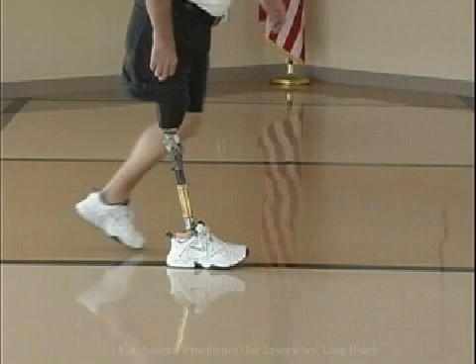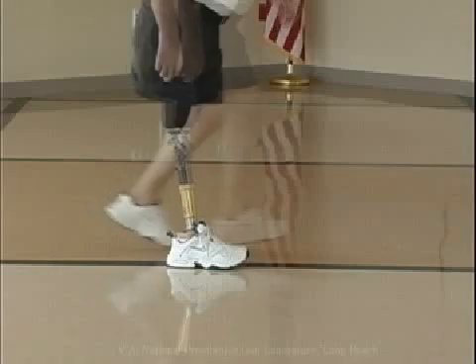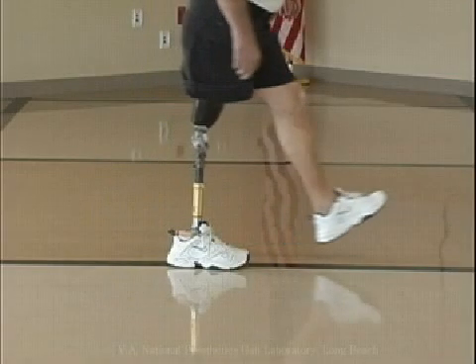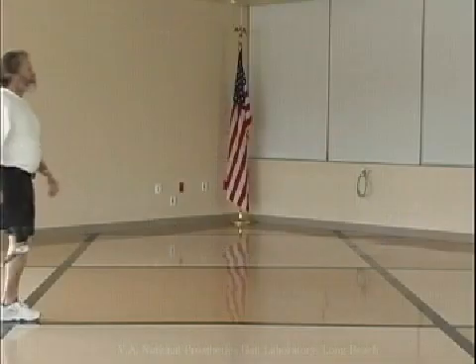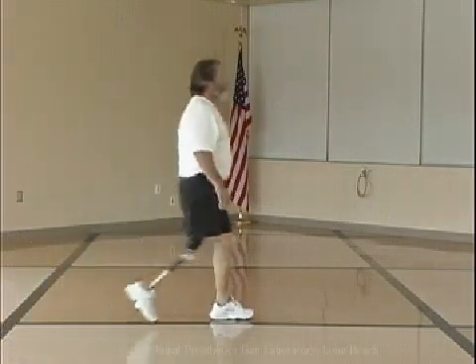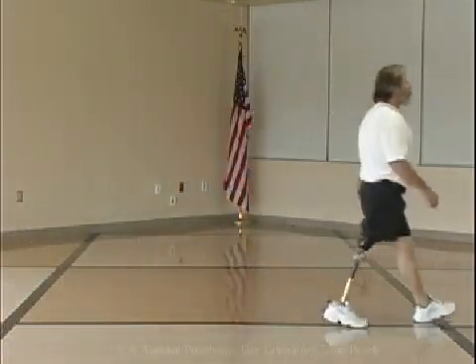Another cause of this deviation is alignment of the knee significantly posterior to the TKA line. It is difficult to initiate flexion in early swing phase with a knee that is too stable.